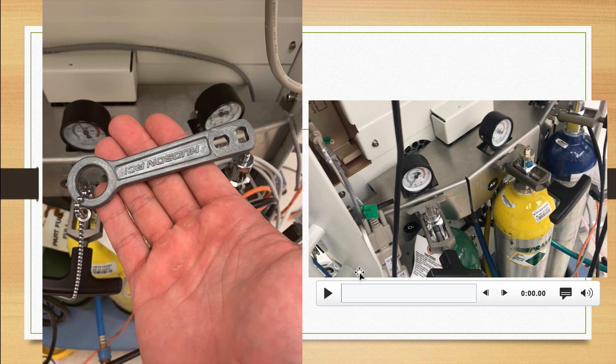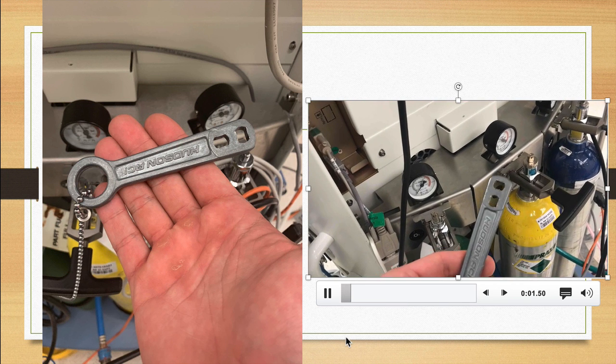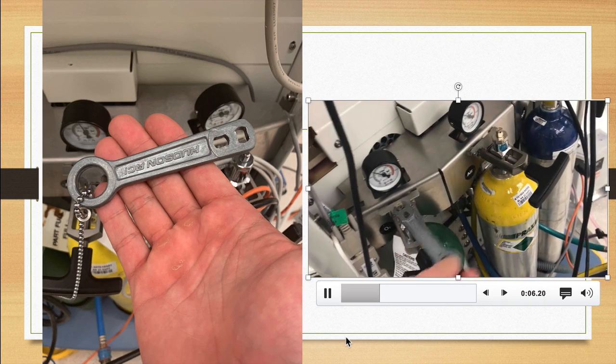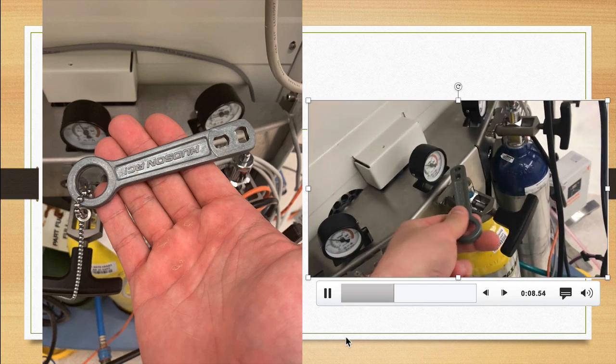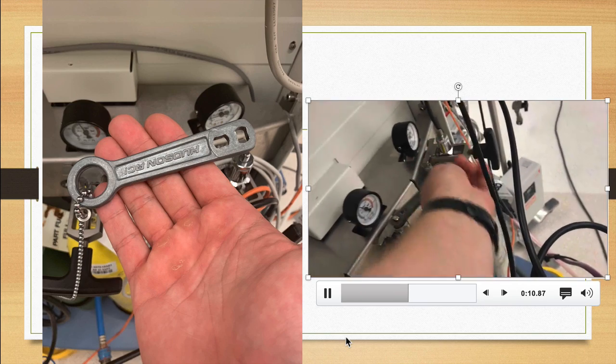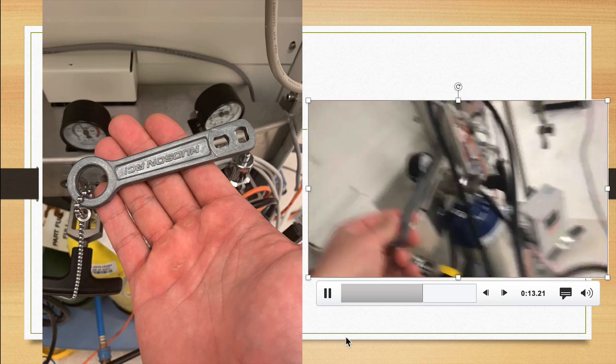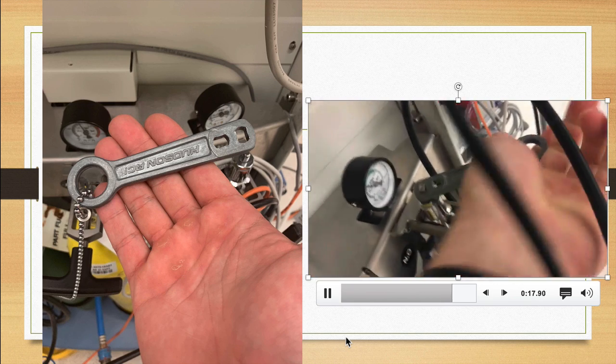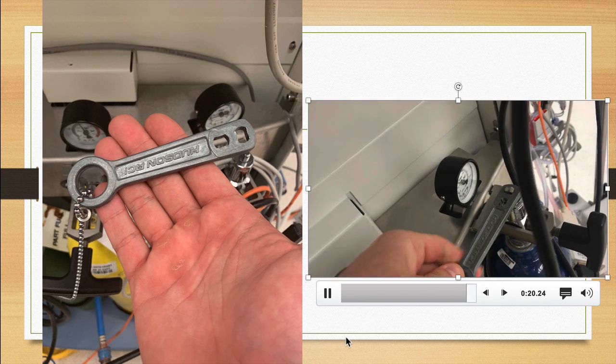I have a video here that illustrates exactly how to apply it and turn. One thing I want you to pay attention to is the pressure gauge on each one of these canisters to see if it moves when I open up the cylinder. There it goes up, closing it off, and notice that the pressure stays up. Goes up, barely moved a little bit, and stays up. Same thing with nitrous. Notice that it went up, and when I close it, it stays up.